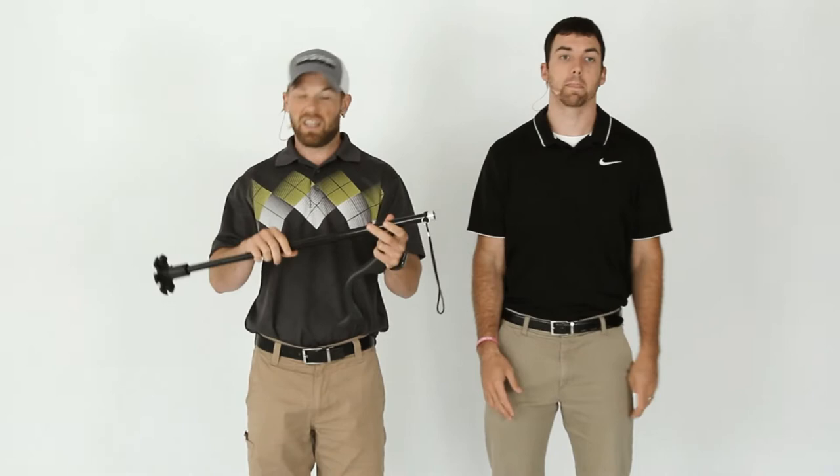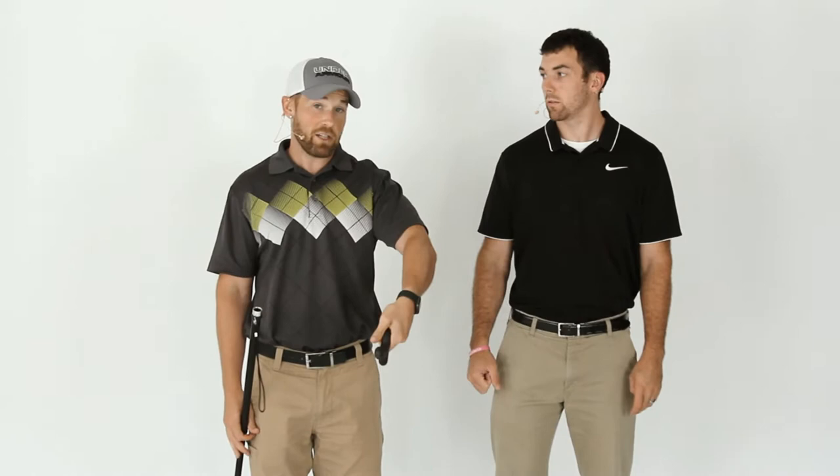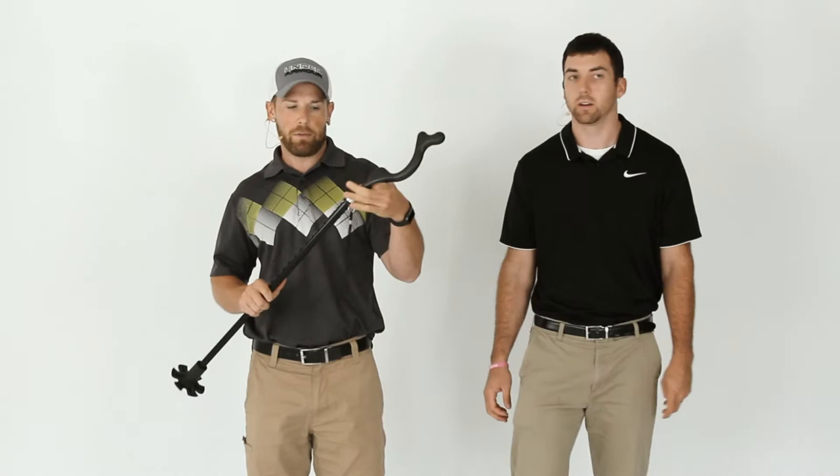The handle promotes upright posture and balance. It gets very tall and it's easy to grab. It's not like a normal cane handle where you can put a lot of pressure on it — it's different. Let's jack it up and show how you're supposed to walk with it.